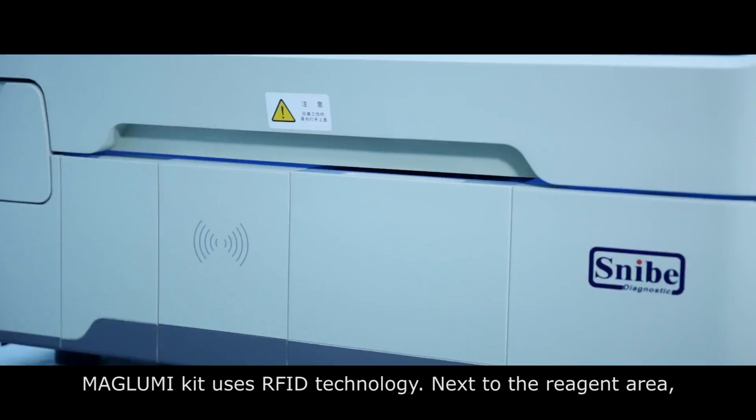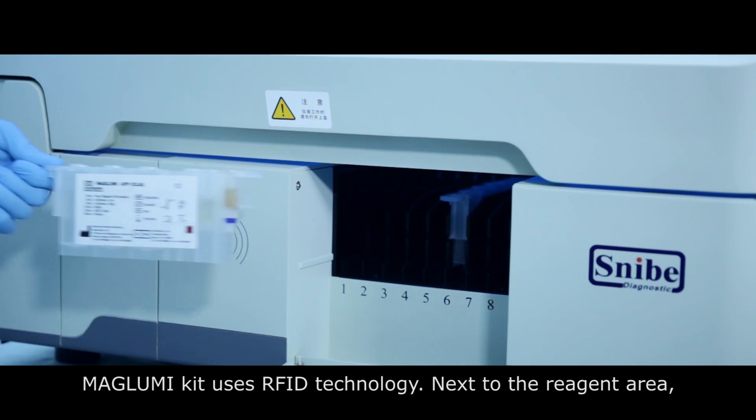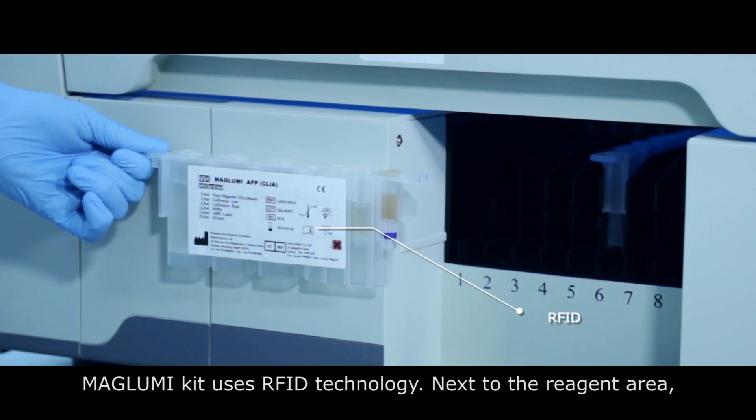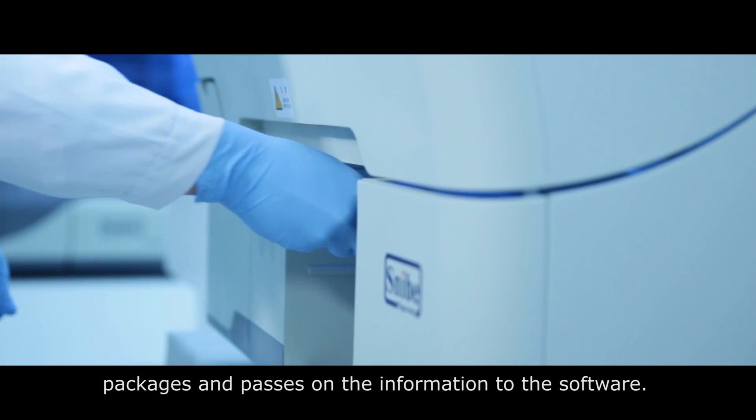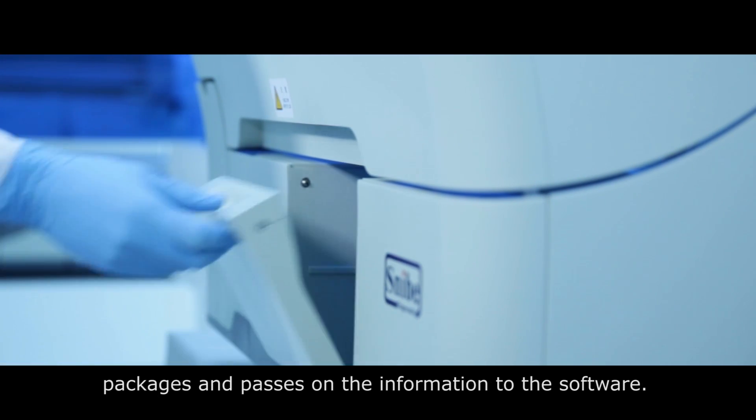Maglumi kit uses RFID technology. Next to the reagent area there is a sensor which automatically reads chips on reagent packages and passes all the information to the software.